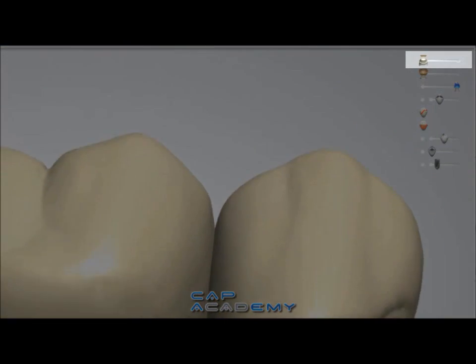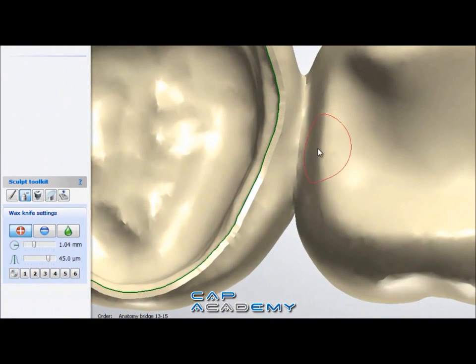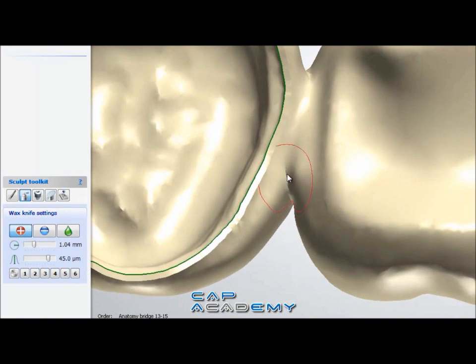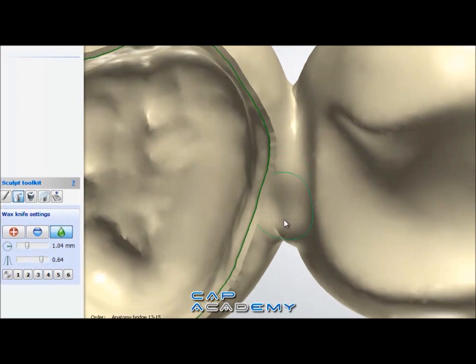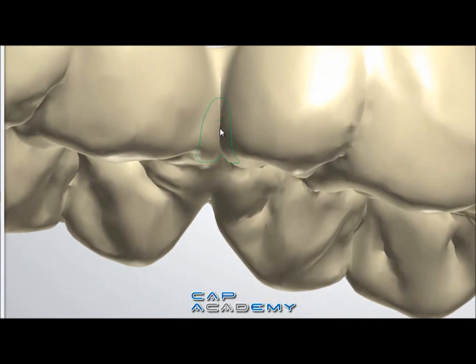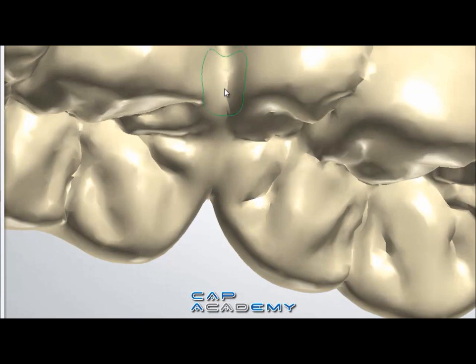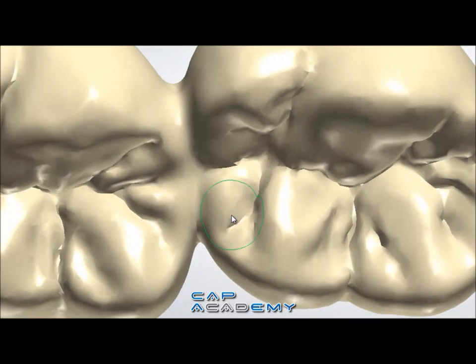If you have a hard time getting to the interiors or the interproximals, you can just hide the operative arch. Say I want to bring it down — you can take the wax knife add tool and kind of bump it down. But rarely you need to do this. Rarely you need to make the connection that strong, especially with a little smoothing.